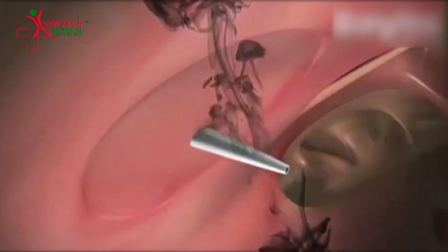Successful entry into the left atrium should be confirmed using appearance of the left atrium during a small contrast injection through the needle.